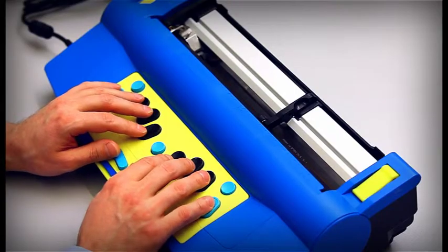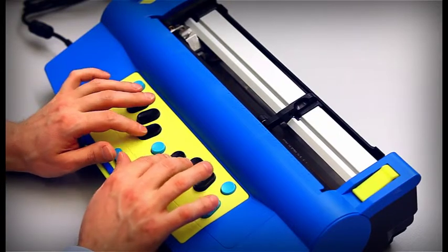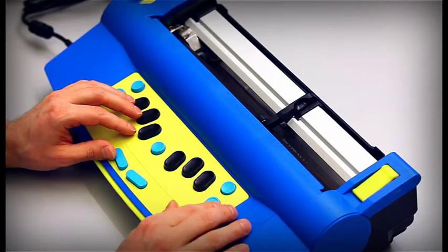To finish writing your file in the memory, press the Command key, followed by E-N-D and then the Enter key.